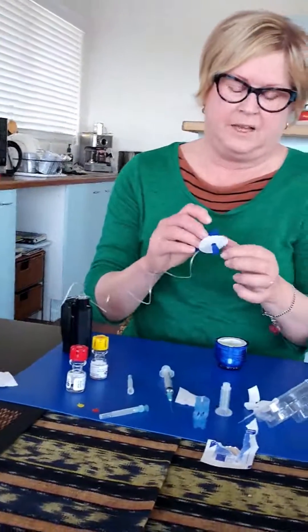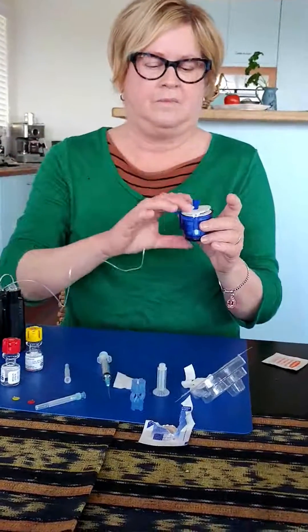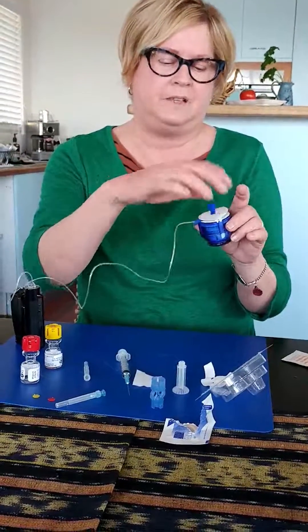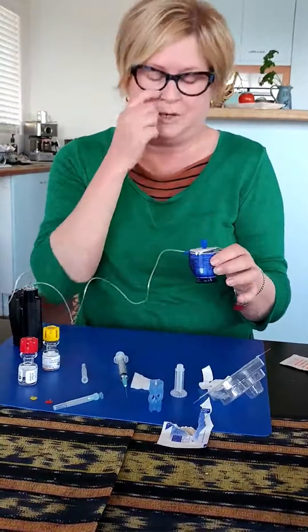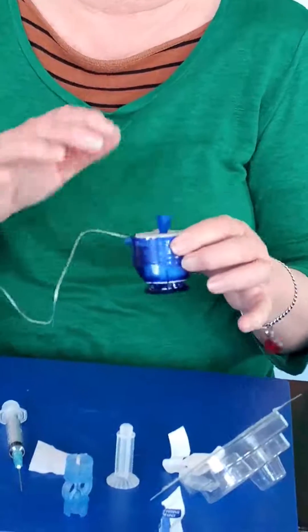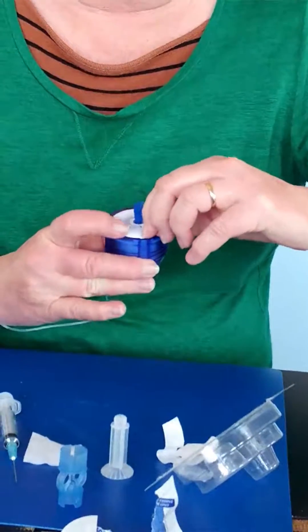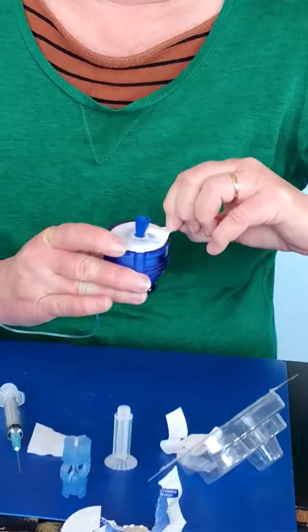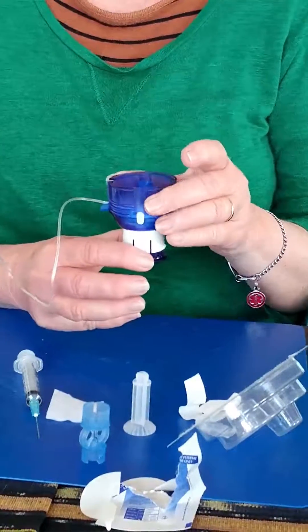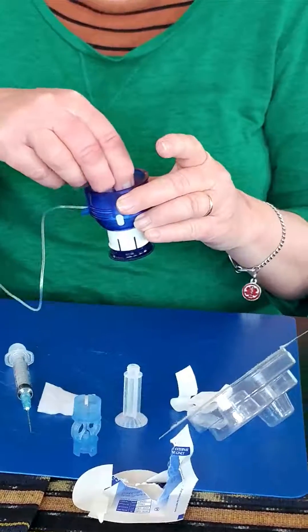So now I have to load my tubing into my little inserter kit. It goes in this way so that there's a little exit point here where this part of the tubing sits into. You press it gently — you have to have this off the table because it won't allow you to press down. Holding it up in the air, you just press until you feel that it's stuck. Then peel back the paper very, very gently. You don't want to lift that — just hold that there gently with my finger. You just don't want the sticky part that goes to your skin to lift off. And then you pull down on there and it's now loaded, ready to go. There's a little plastic device in the centre there that you have to very gently twist and pull off.